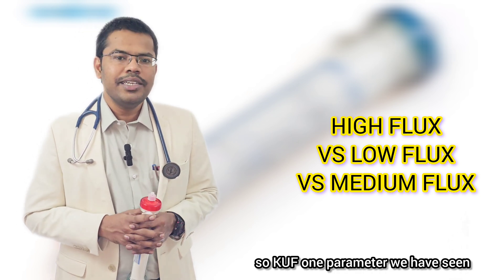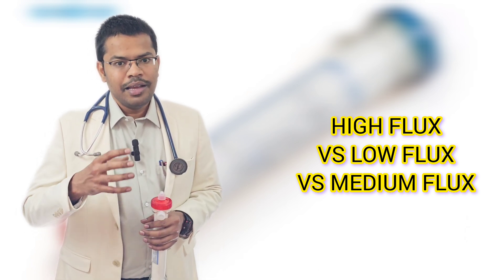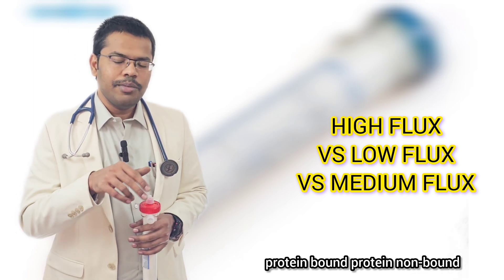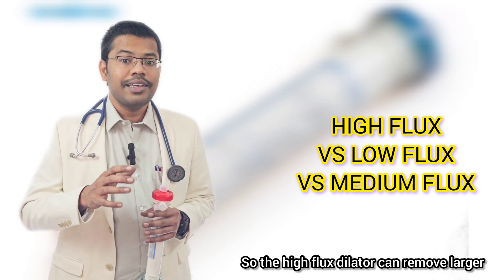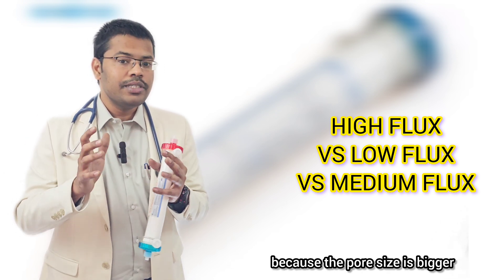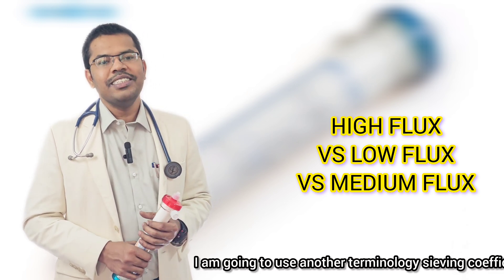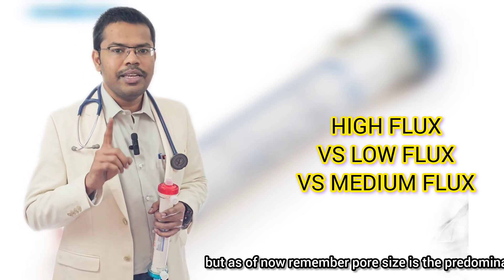KUF is one parameter we have covered. The second parameter: since the pore size is bigger in high flux dialyzers, larger molecules can pass through. Uremic toxins, as you know, are of three types — low molecular weight toxins (protein-bound and non-protein-bound), middle molecular weight toxins, and higher molecular weight ones. High flux dialyzers can remove larger, middle molecular weight molecules; low flux dialyzers cannot, because their pore size is smaller. Another parameter — the sieving coefficient — will be discussed in subsequent episodes.